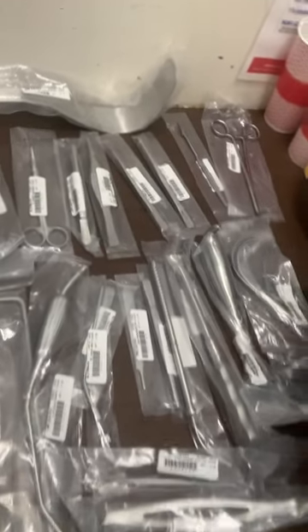I'm not able to flip my camera, so pardon me on that aspect, but we'll work with what we got. As you guys can see, these are a bunch of tools.